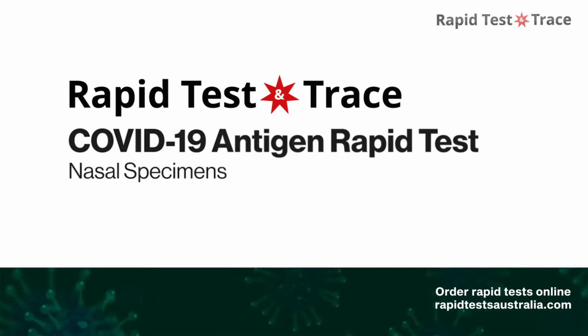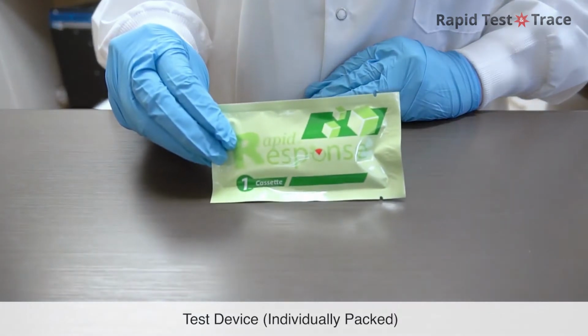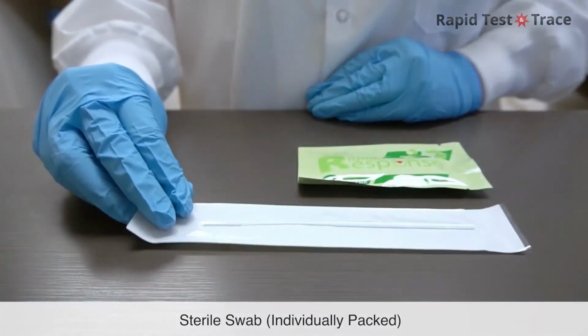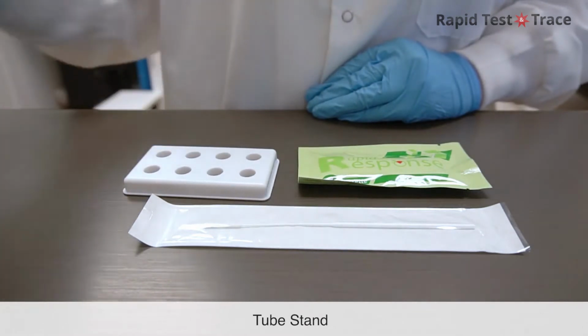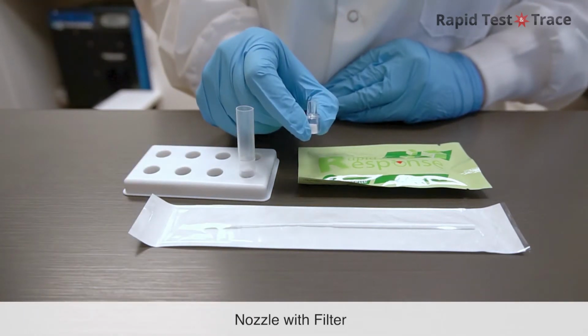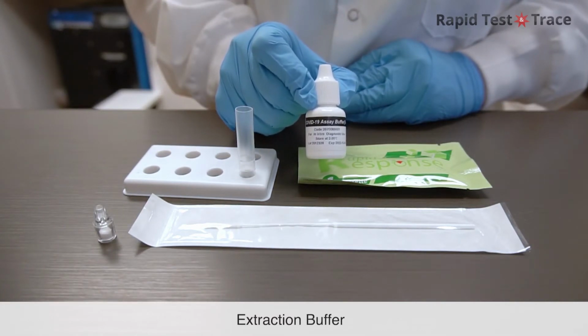This is a demonstration of how to perform a COVID-19 antigen rapid test. While Rapid Test and Trace Australia offers a variety of tests, the general testing process is very similar for each manufacturer. The test kit contains a test device, a sterile swab, a tube stand, an extraction tube, a nozzle with filter, and an extraction buffer.